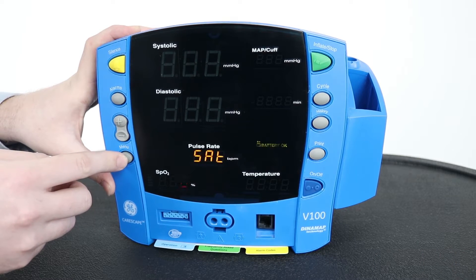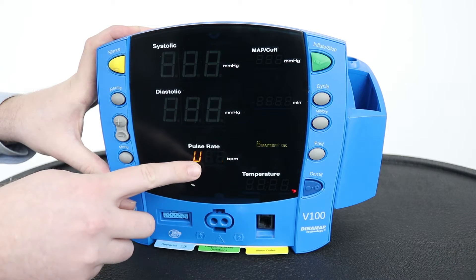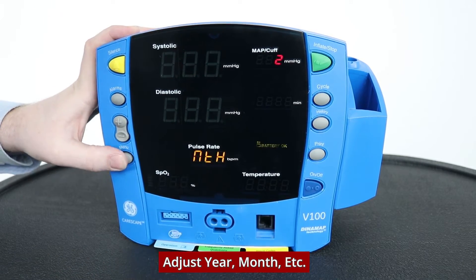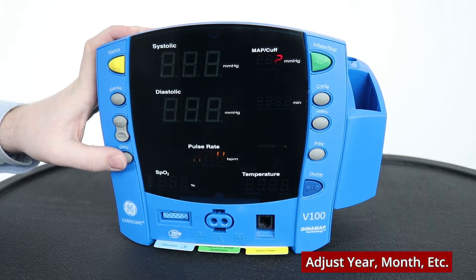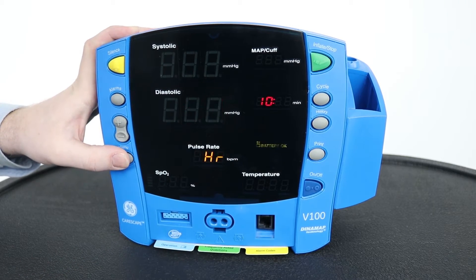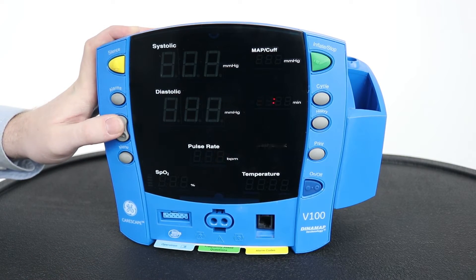We can see what we're going to be changing by looking at the window here. This is year — so the year is 2020. Month, February. Day, 20th. Time, hour.